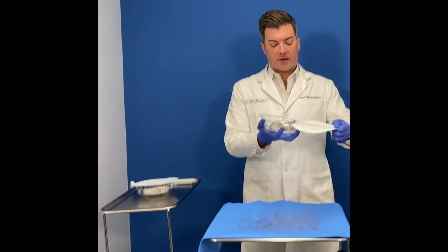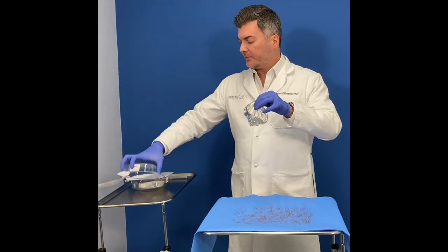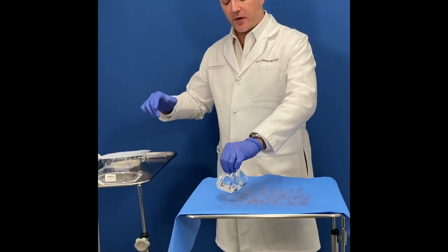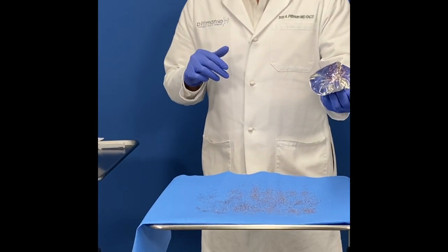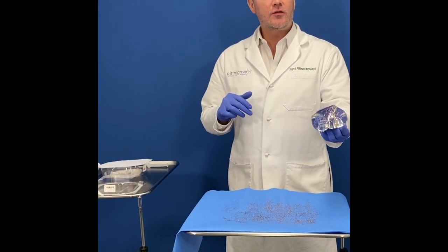When I open the packaging and take out the implant, we're going to run the implant over glitter. You can even hear that. You see how the glitter is actually drawn to the breast implant.